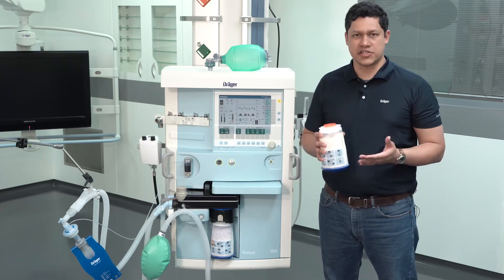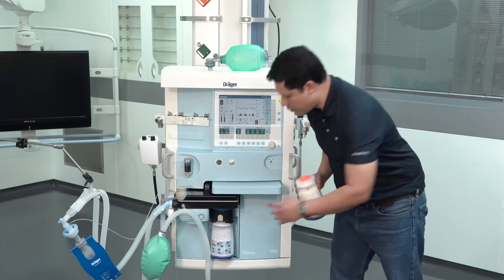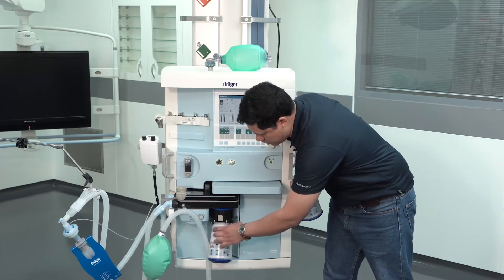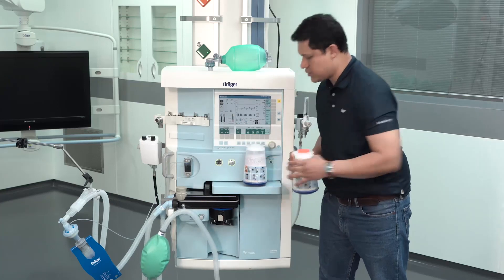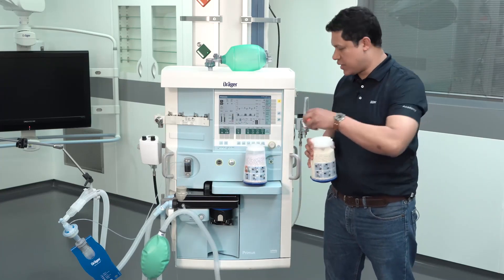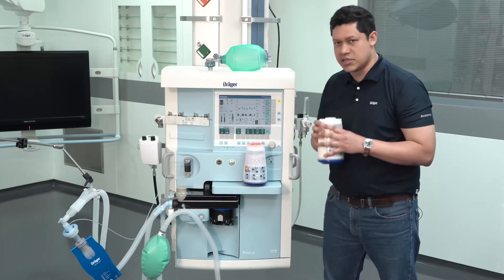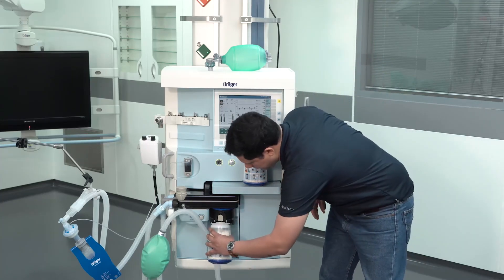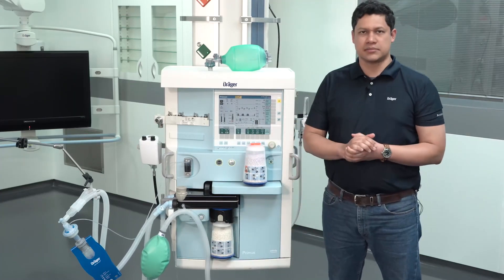When sodalime exchange is required, press the button to release the cartridge. Take it out, take the new cartridge and remove the red cap, insert the new cartridge, and lock it back in place.